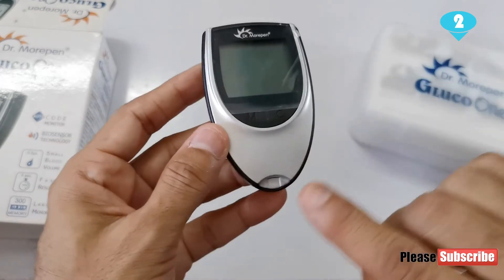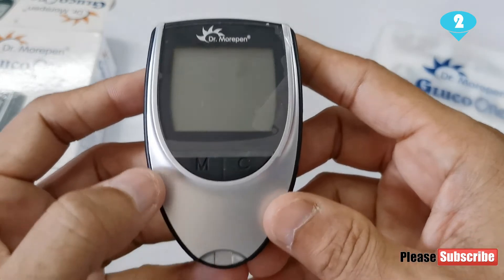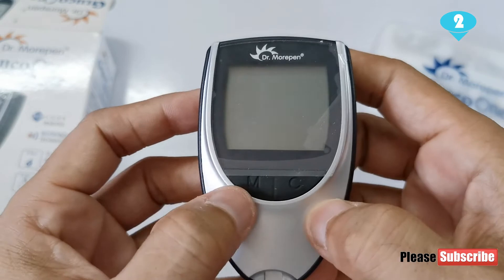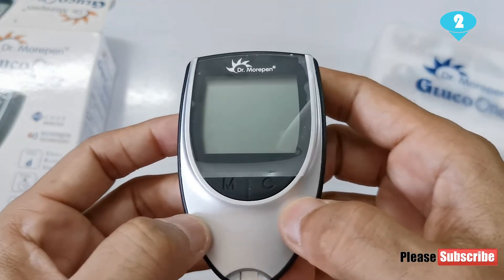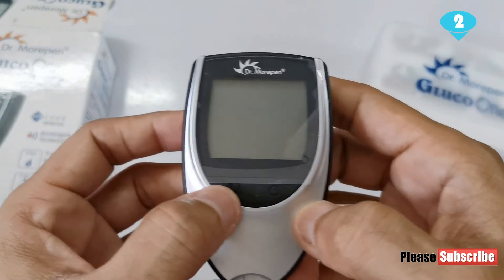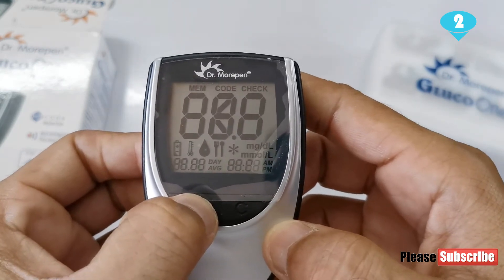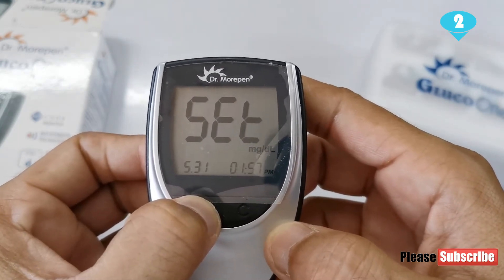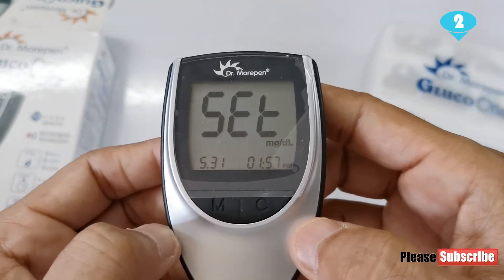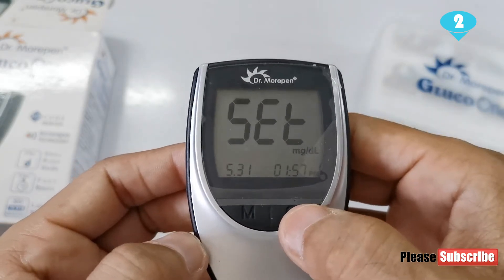This is your monitor wherein you put in a strip. Now I typically wouldn't come on like that, but for this purpose what one can do is — you see the M and C buttons over here. There is an M button here — I'm not very sure if you're able to see it in the video — and there is an S or C button over here. You need to keep this M button pressed for a little longer. It shows you 'set, set, set' and you see '5' is blinking. The 5 is your month.